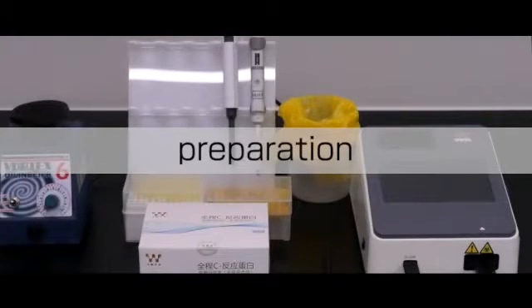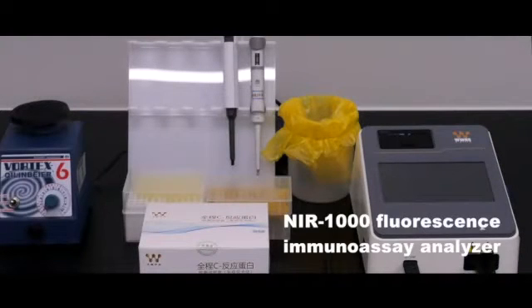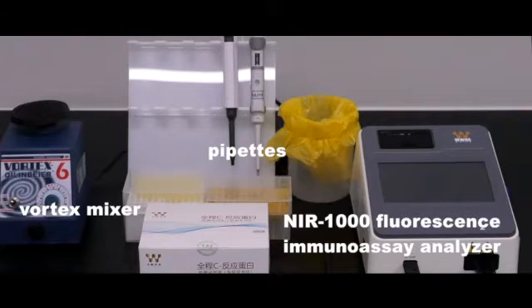Some instruments, including an NIR-1000 fluorescence immunoassay analyzer, a vortex mixer, and pipettes, will be used in this test.